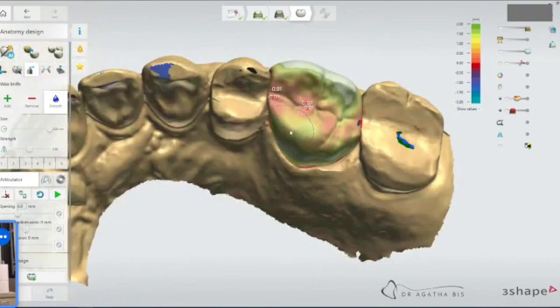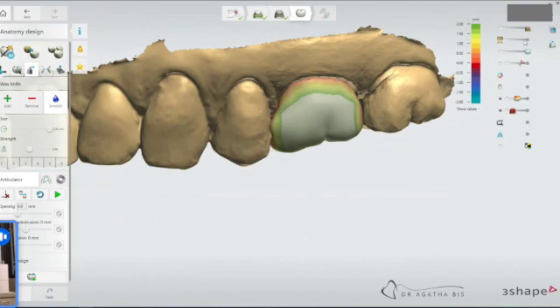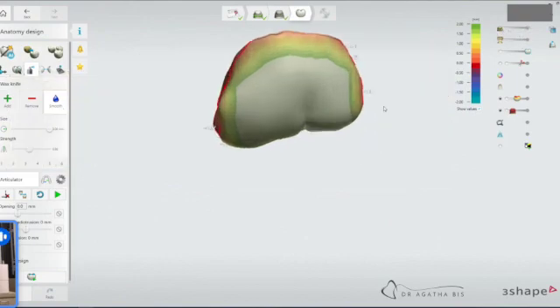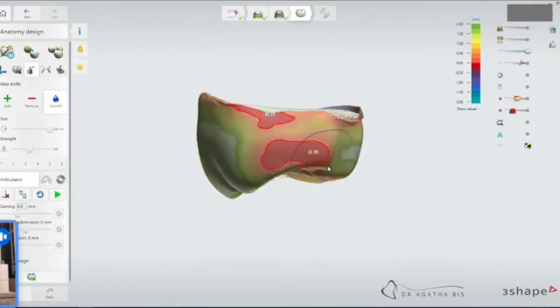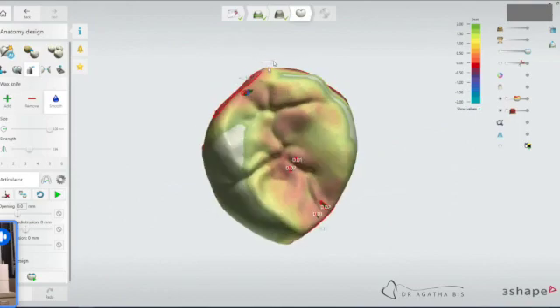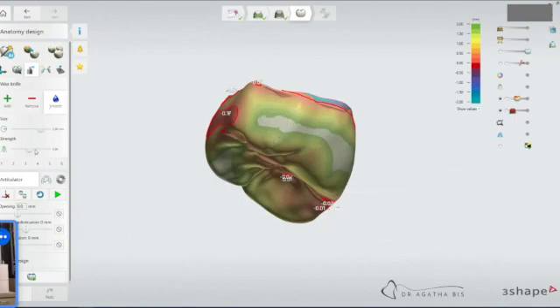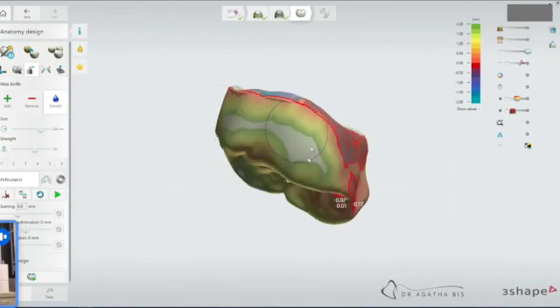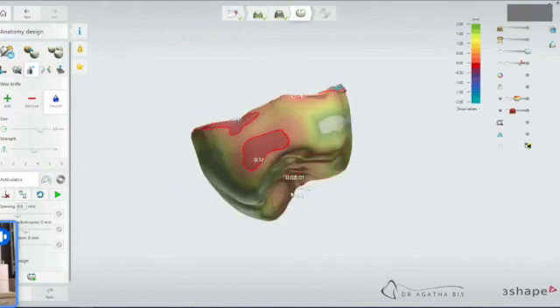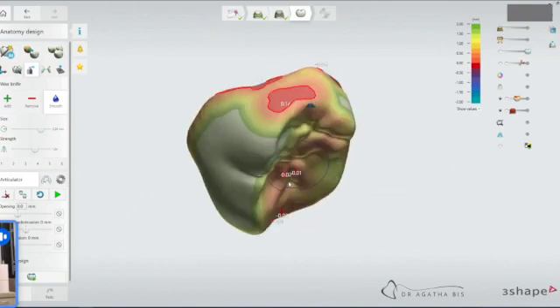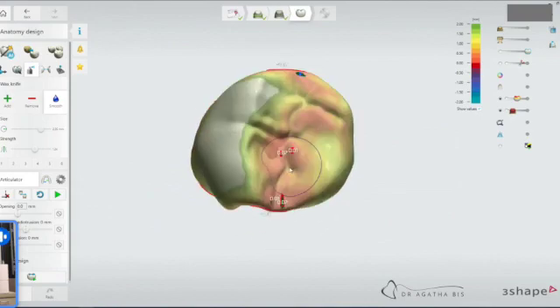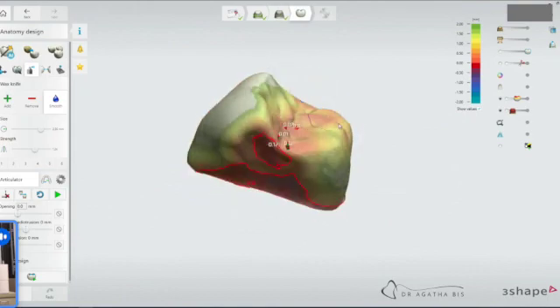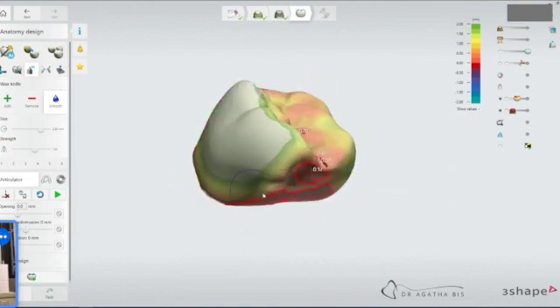And now what we want to do is take a look at this crown on its own. So we click off the adjacent, the prep, zoom in, still have that distance function on and then notice that it's kind of lumpy here and here. So I'm going to use the smoothing tool again and just smooth it out a little bit everywhere. I tend to use a fairly high strength and I can always add if I want. Just kind of smooth it out here. It's a little too broad for me.